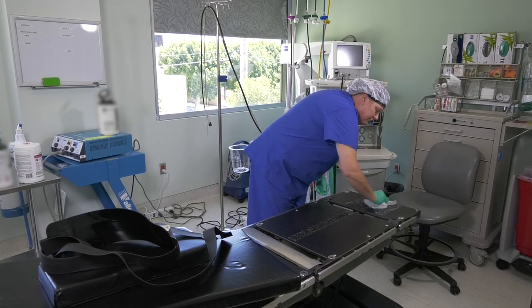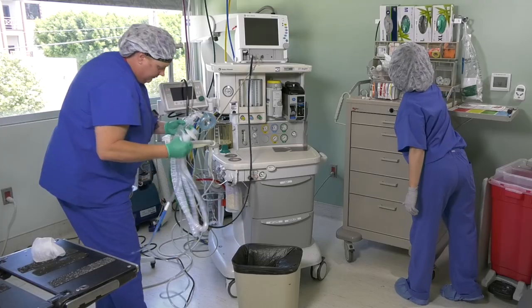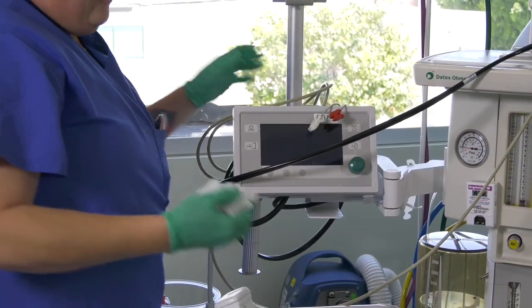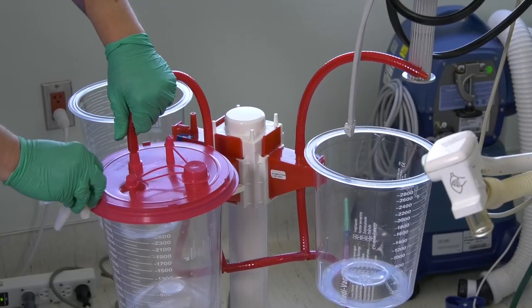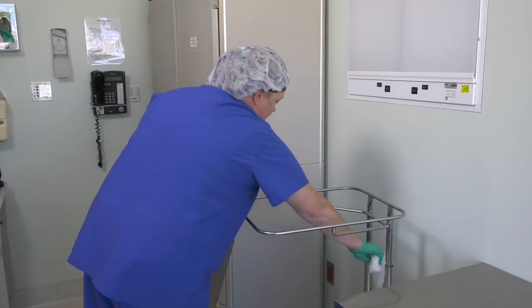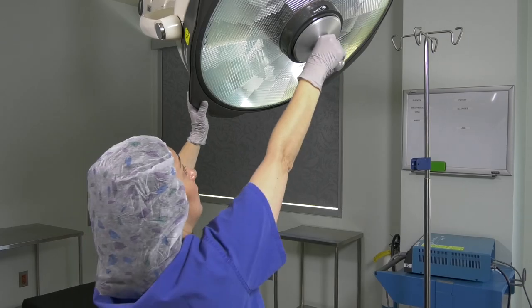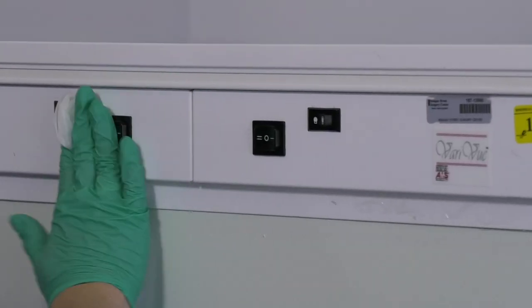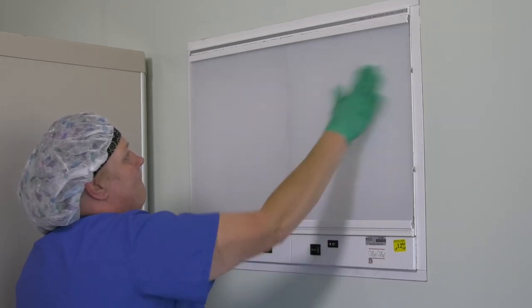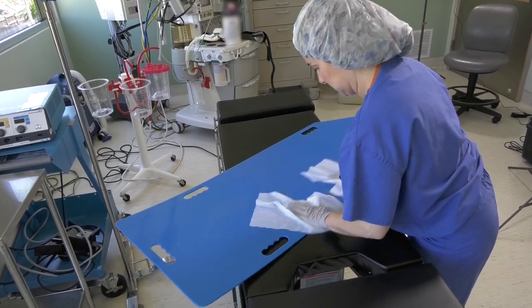Clean after every patient: the entire bed from top to bottom, the IV pole, the anesthesia cart, the anesthesia machine, any carts with computers or monitors, and suction canisters — everything closest to the bed. Be sure not to forget the tables or mayo stands by the wall, boom monitor stations, upper screens or monitors such as the x-ray monitor screen, and any equipment or objects that touch the bed or the patient, such as the patient slide.